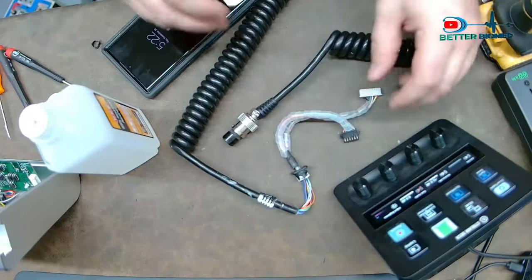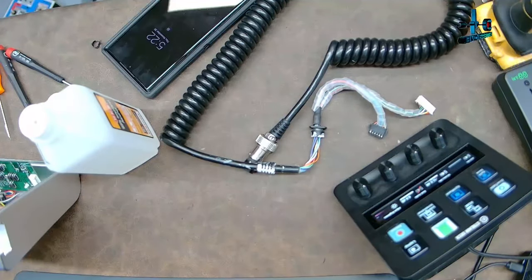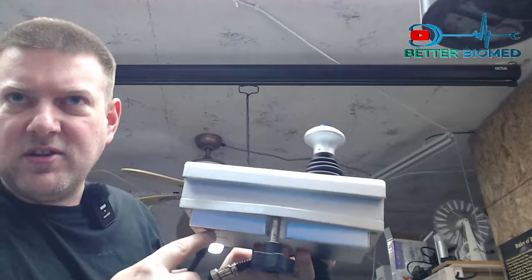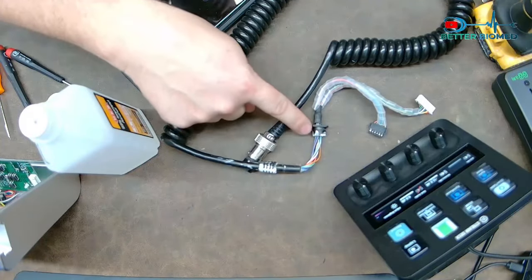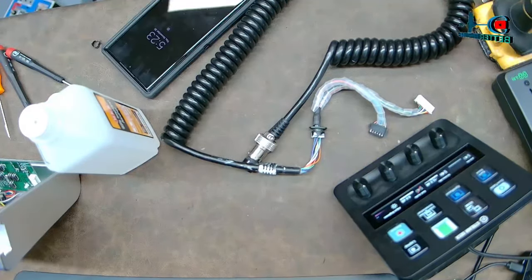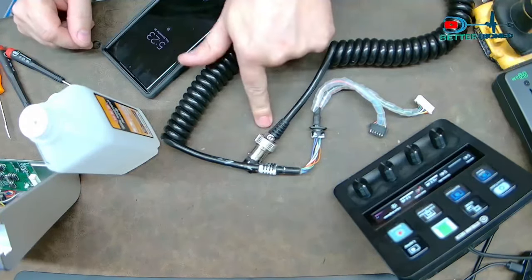This is the cable and this is the inside of the cable. It was a little bit jacked — you can see it's a little bit stretched out. I have a second example here and you can see this one starting to do it too. See the strain relief and how it's starting to come out of the bottom? Well, this first one was an extreme example of that — the cables were sitting really far out. You can see this is the embedded strain relief and that's how far it has been yanked. When you start yanking things, it has to give somewhere else, so if it's been yanked here, that means it probably gives here.